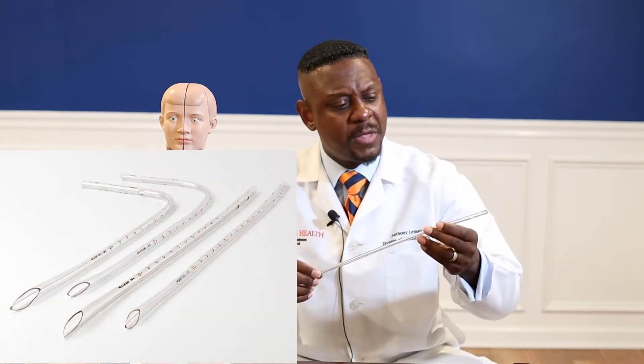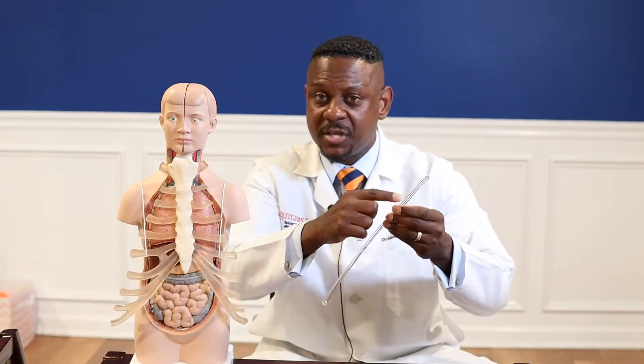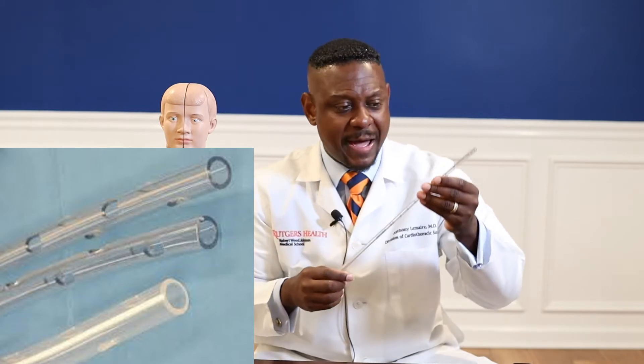This is one example of the tubes that we place in patients. There are different types of chest tubes based on the material they're made of and their thickness. This is a hard chest tube, but there are softer ones, sometimes referred to as Blake drains. They range in size — from 12 and 14 all the way up to a 36 French chest tube. These chest tubes have holes along the sides to maximize the amount of air and fluid you can remove. One reason to use a bigger chest tube is if there's blood around the lungs that has clotted and become difficult to get through smaller holes.